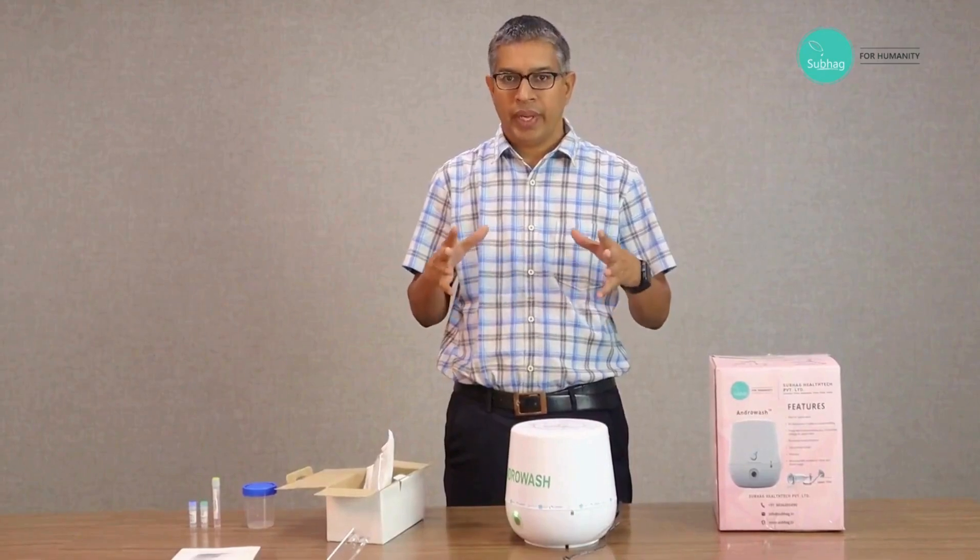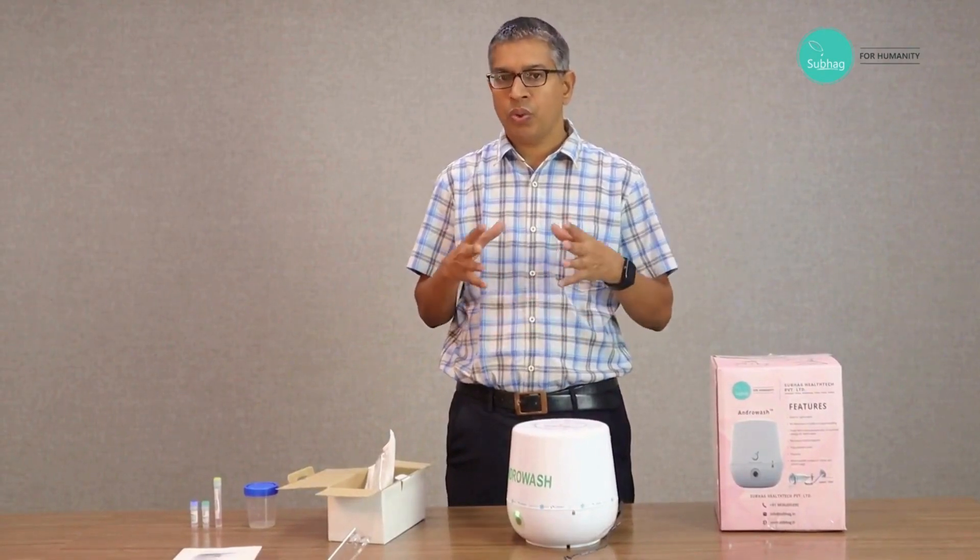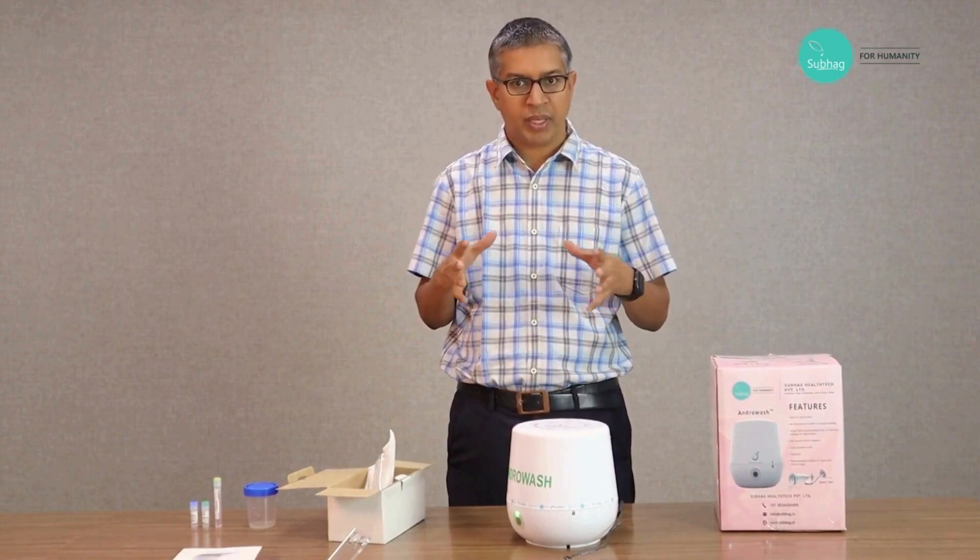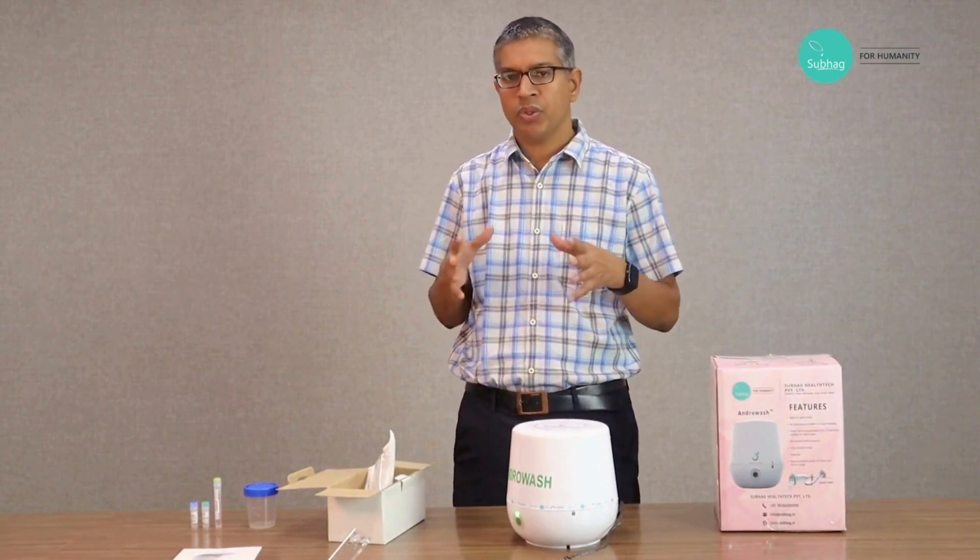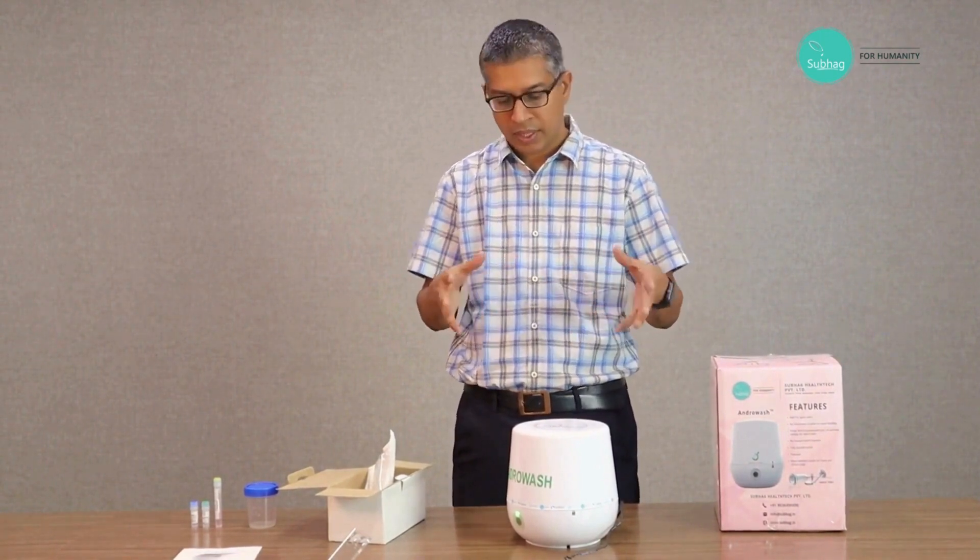Hello friends, today I am going to explain how to do sperm washing with double density gradient method using automatic centrifuge, that is Androwash.